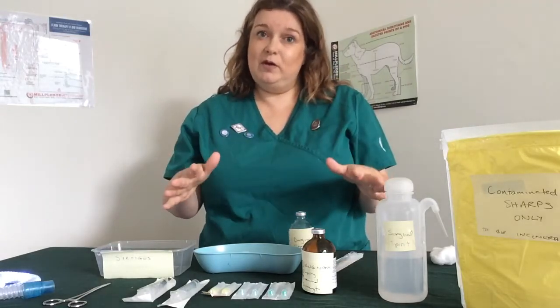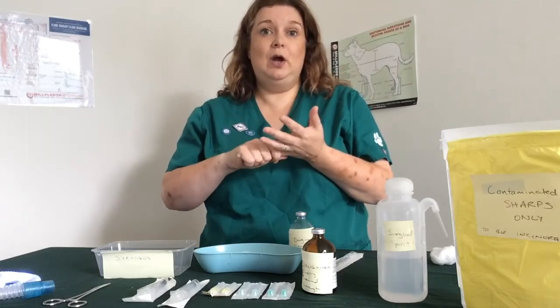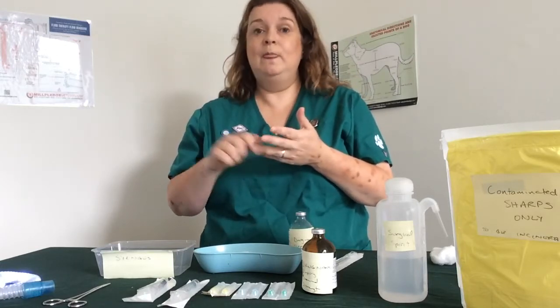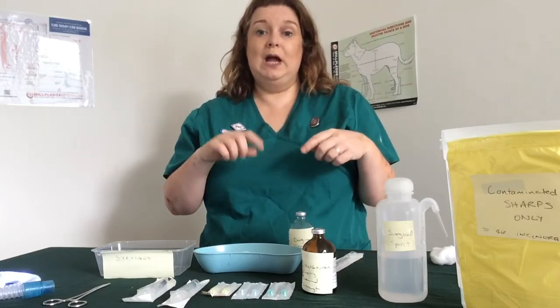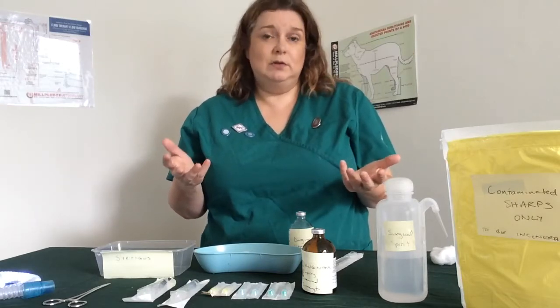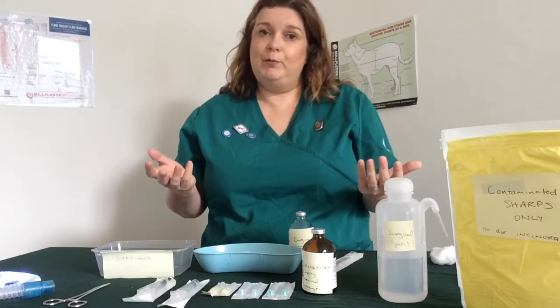Needle size people get worried about. So you'd be advised for a subcut injection or an IM horse injection, you're going to go yellow or green, so a bigger needle. For an IM injection on a dog or cat, I'd be looking at blue or orange. So that's it. You are very unlikely to fail on needle choice because we know that that is subjective and there's evidence for both camps.